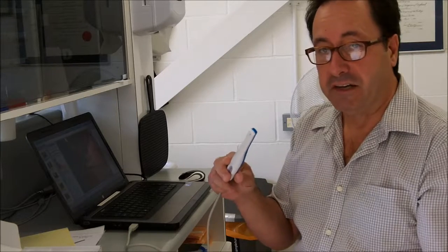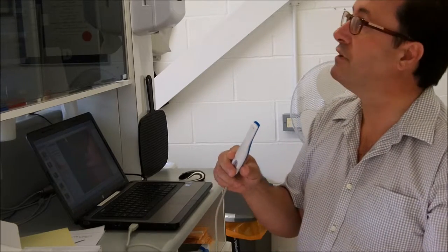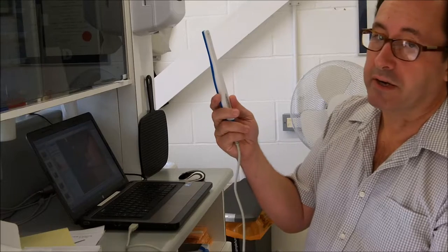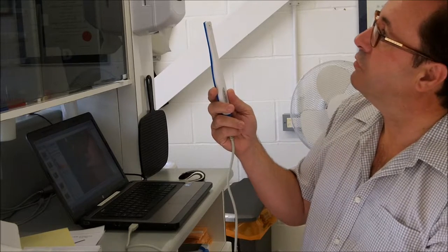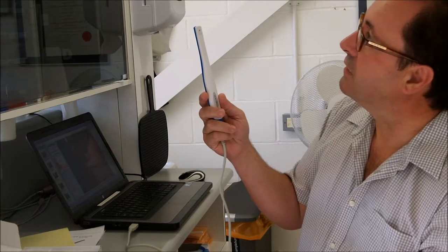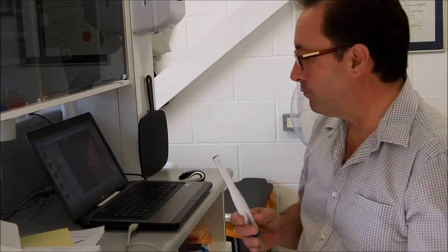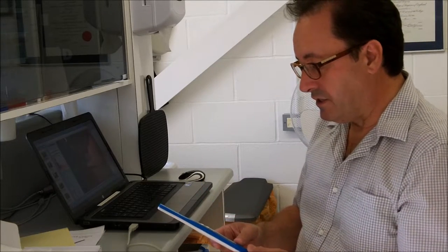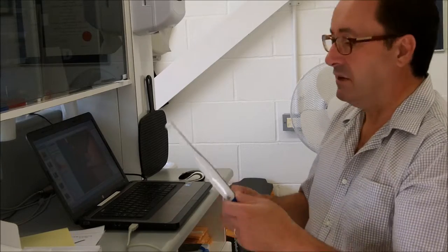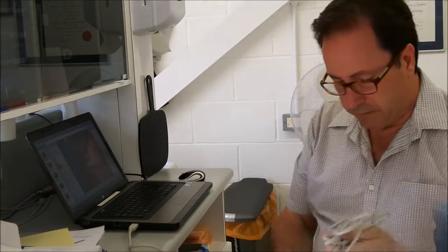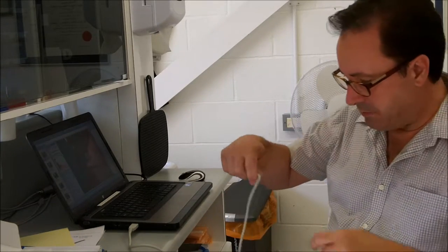Also, I've had a bit of buffering problems on the Dario, which means that as you're using the camera to look around the mouth, the picture's freezing. Not much, but it is definitely freezing. And just a very quick test I've done on the 740, it's not, it wasn't freezing. What else are the differences? I mean, as I say, otherwise, I think, basically, they are identical. The only other thing I'm going to do quickly is compare the length of the cables. I think, again, identical, look, to within a centimetre.